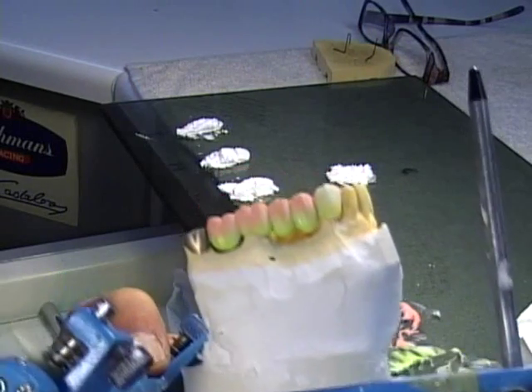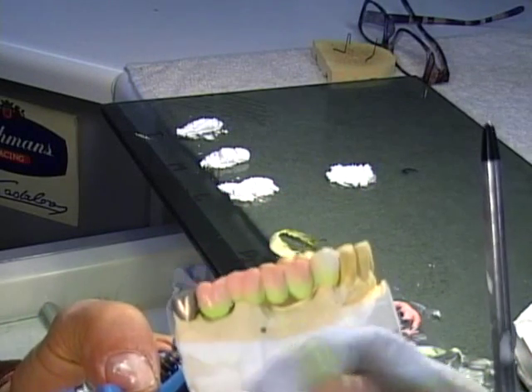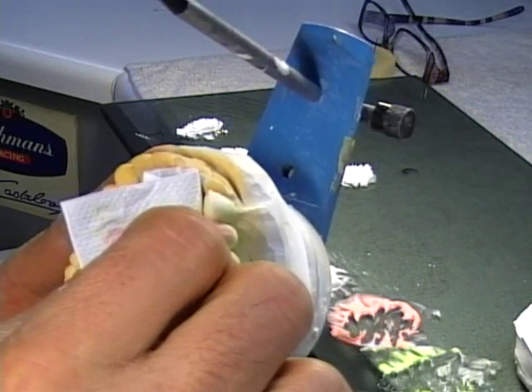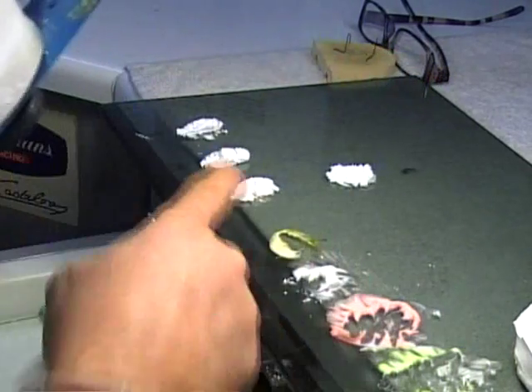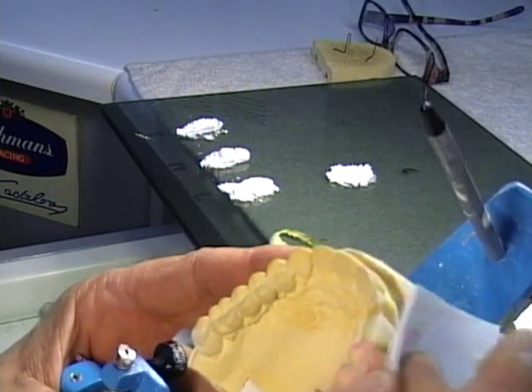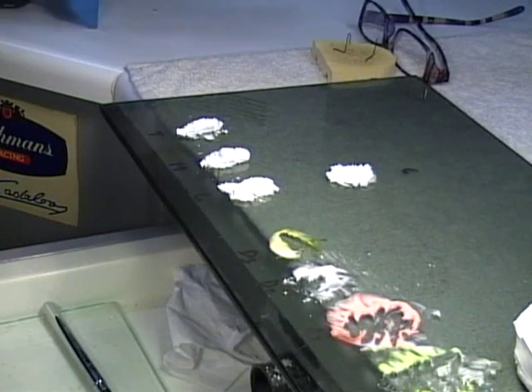Okay, here we go. I still haven't worked with my enamels. You see my enamels are still in the powder shape. Once I have dried this just a bit — like you've seen — now I'm going to put it aside, mix my enamels, and be right back with you.